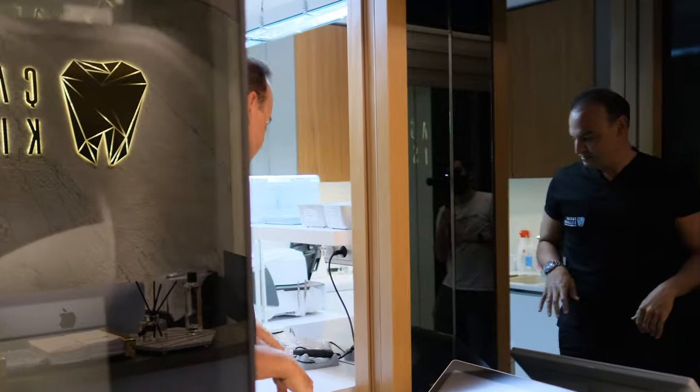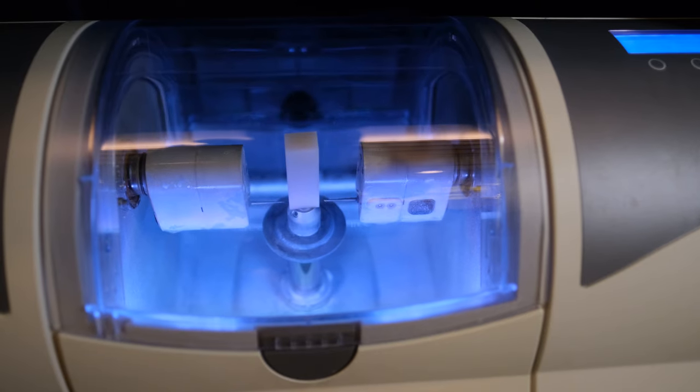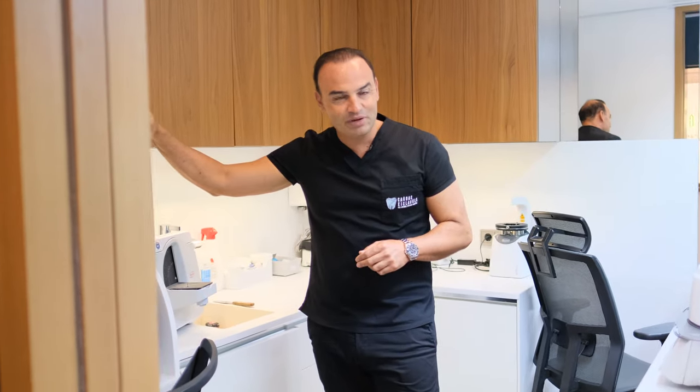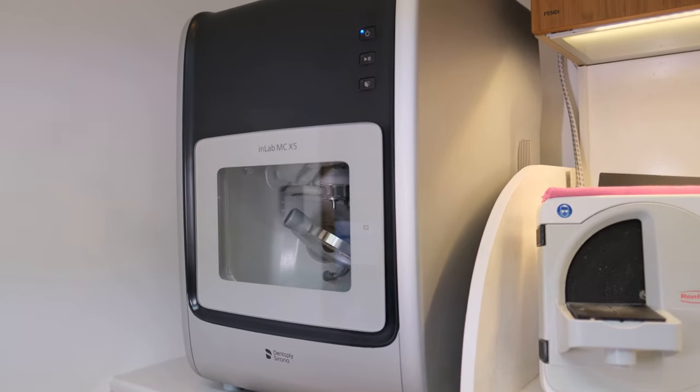Come inside please. I have three different kinds of milling machines, and this is one of the milling machines that I like to use. After we do the milling, on top of it we use handmade work — always handmade. Later on I will show you the handmade part of the laboratory.